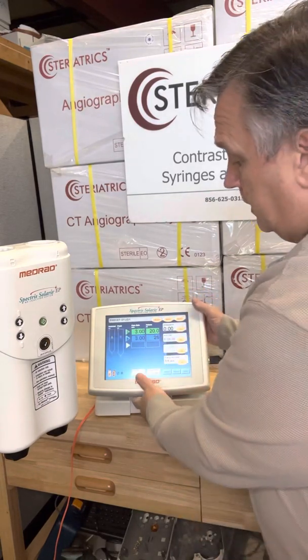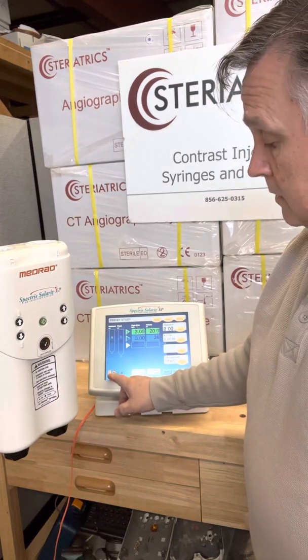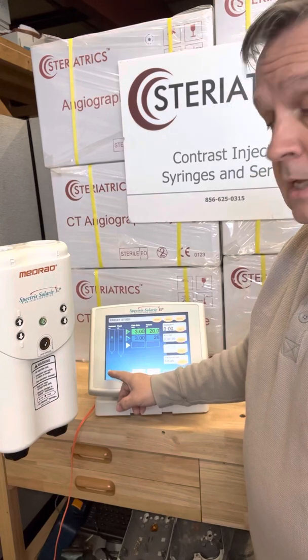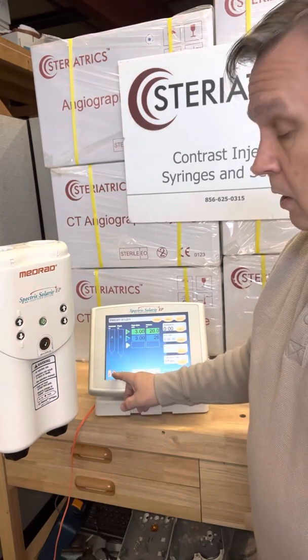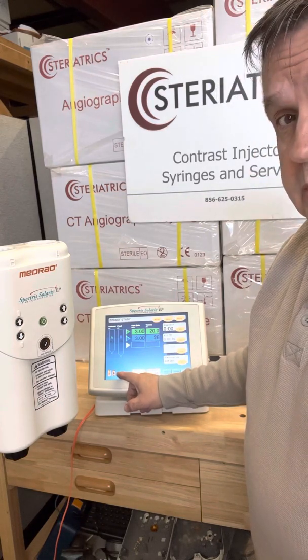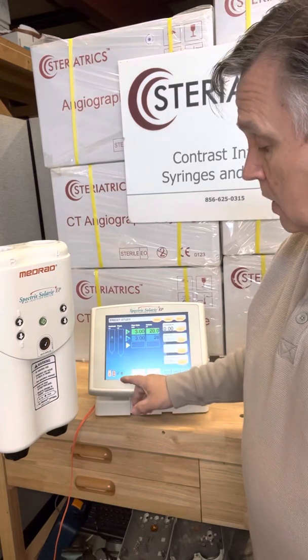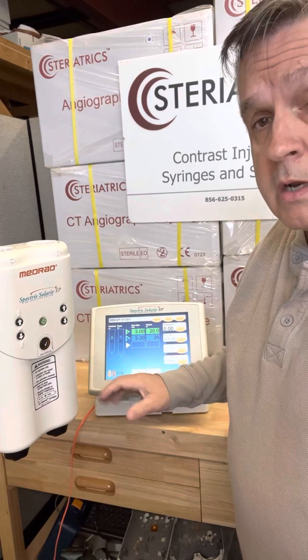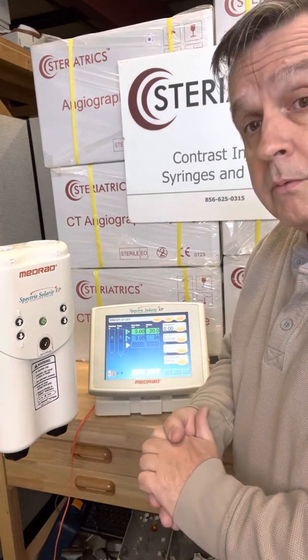Down here you can see you actually have a picture of a head with two arrows running in opposite directions. That means that the injector is communicating with a monitor. You want to make sure that's lit along with the battery power. Next to that is a small check mark — that's the one you're going to do for check no air. And then you have a little plug-in icon; when that's lit, that means your continuous battery charger is connected to the unit. I don't have it connected for this one — we're just working off pure battery power. But here we go, let's start using this.